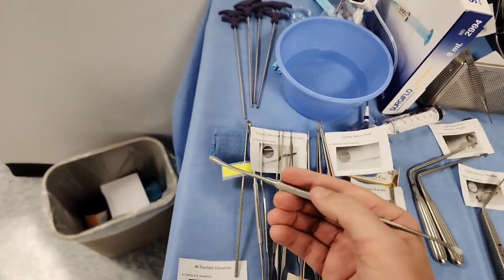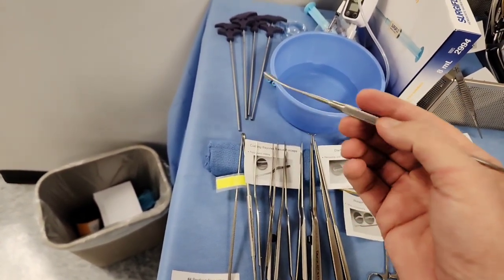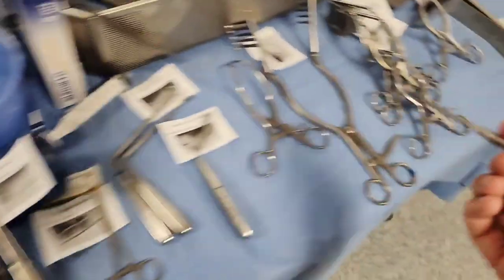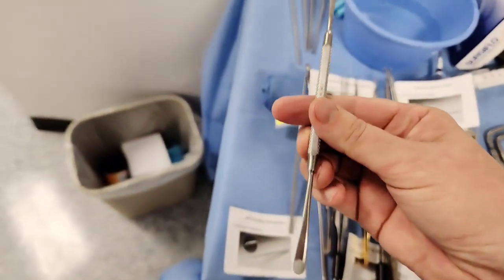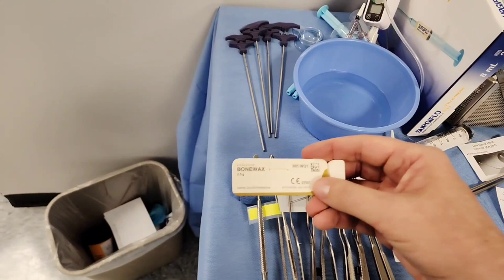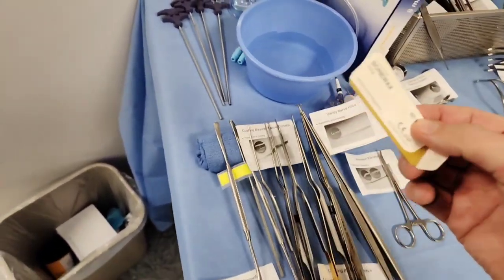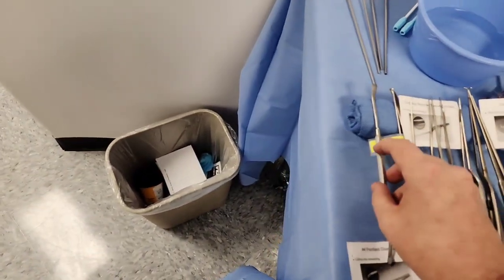If you nick the dura, you use what they call mechanical hemostasis. Bone wax has a natural way of stopping the bleed — if you nick that dura, you'll typically put some bone wax down, maybe some gel foam with some thrombin, then follow it up with a cottonoid. This is the Freer and it has a little bit of bone wax. Bone wax comes in just like that — it's wax. Roll it up into little balls and have it on the back of the Freer to stop some bleeding.